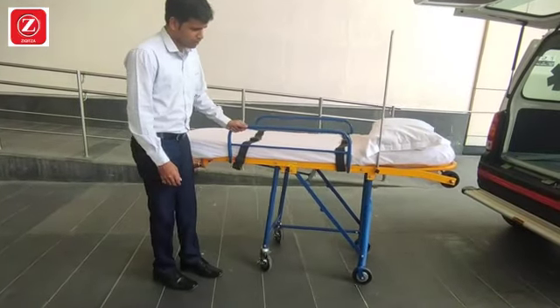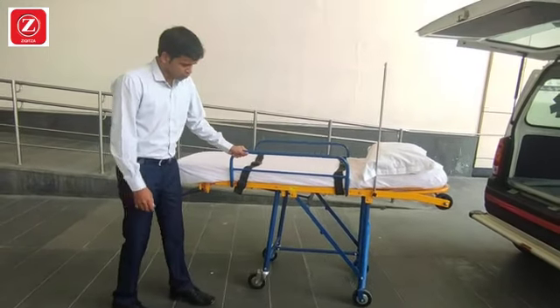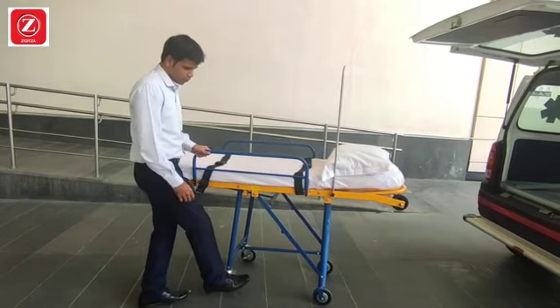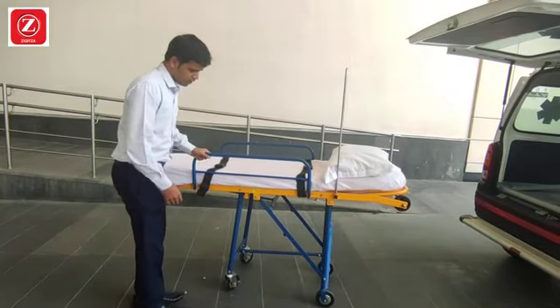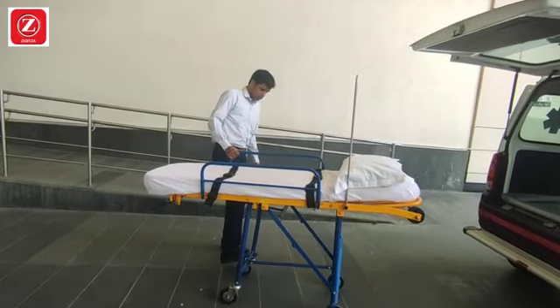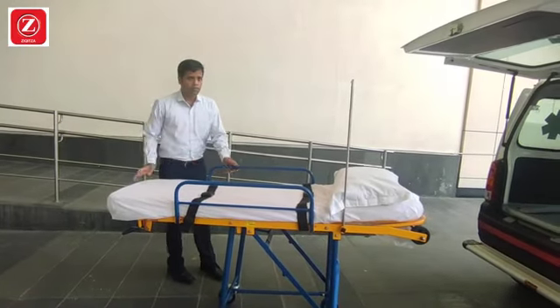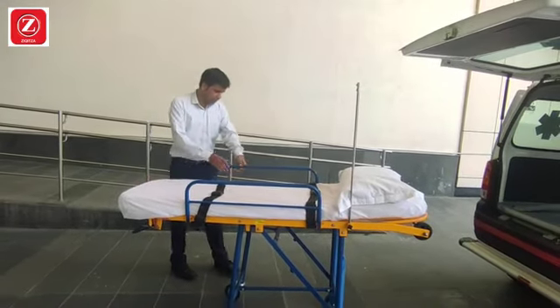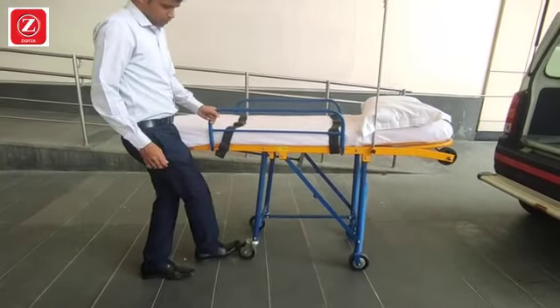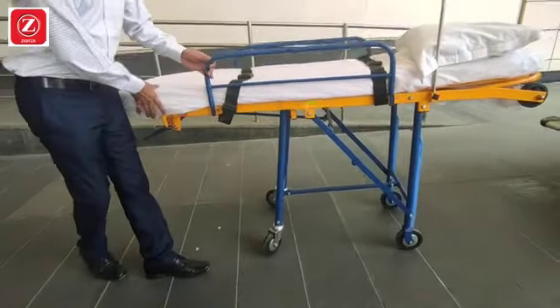When you have a patient to slide, you will have locks on one side of the stretcher. When you press the lock, the stretcher will not move. If you lock both sides, the stretcher will be fully secured. When the lock is open, the stretcher can be moved.